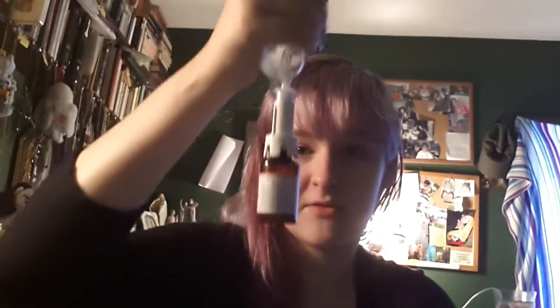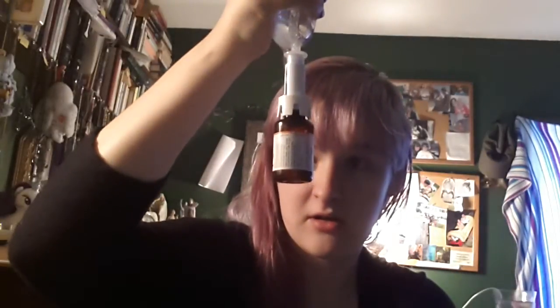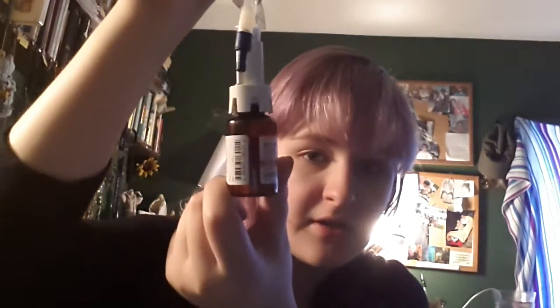If it's already a liquid, you don't have to do this. So just keep squeezing it — see, that's about half full — and then just kind of shake it back and forth so the powder dissolves.